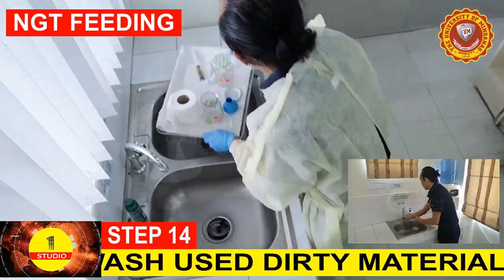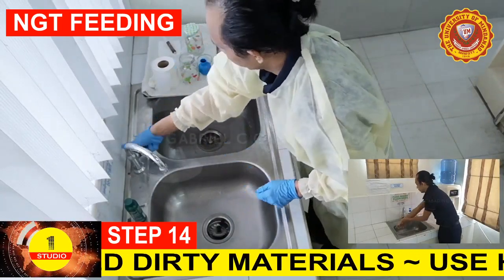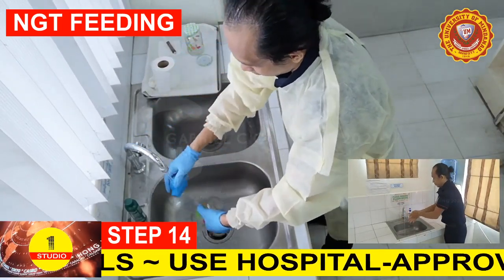Step 14. Wash used materials with a hospital-approved cleaning product and warm water. Keep them dry.